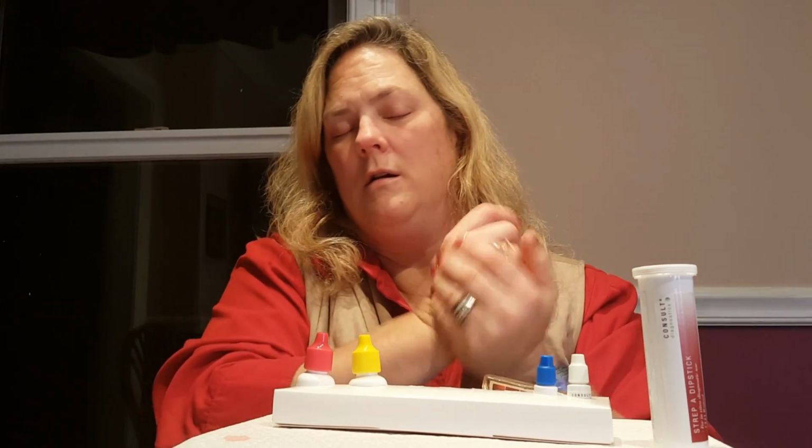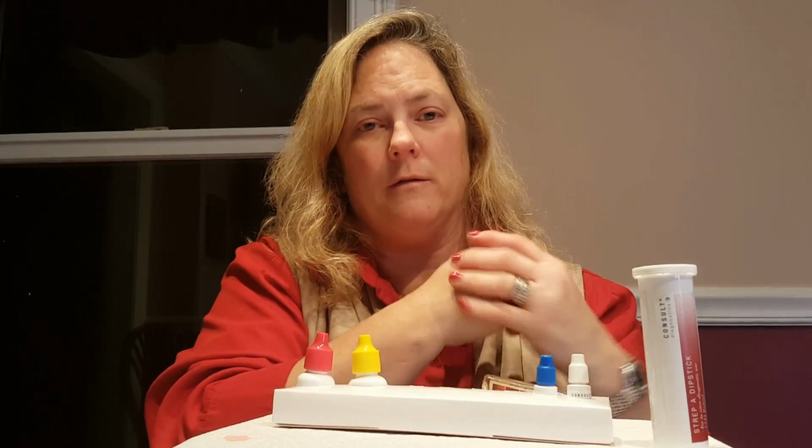And that concludes the quality control testing video and competency video for strep. Thank you.